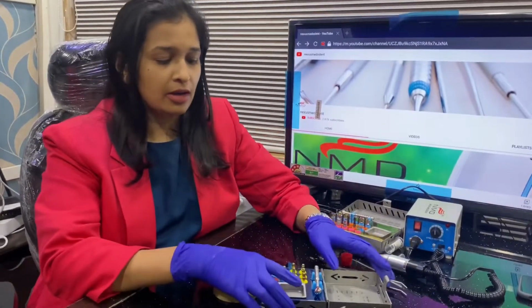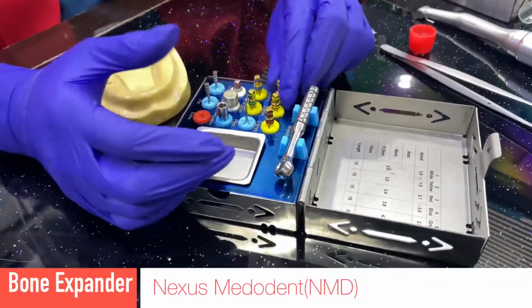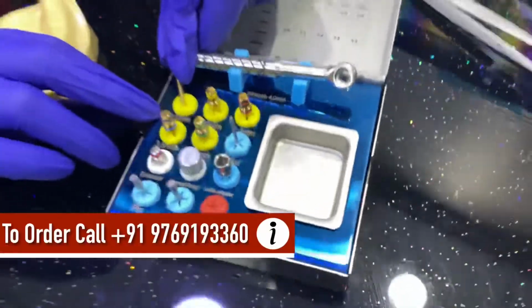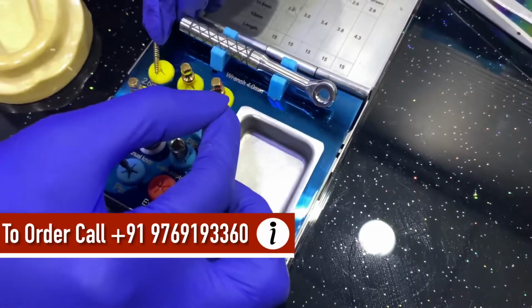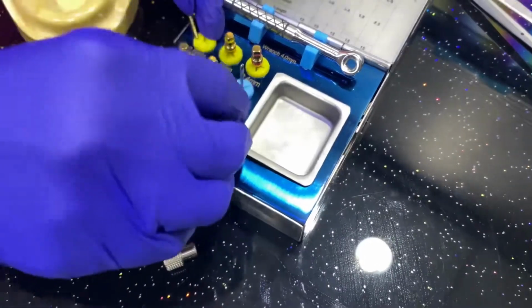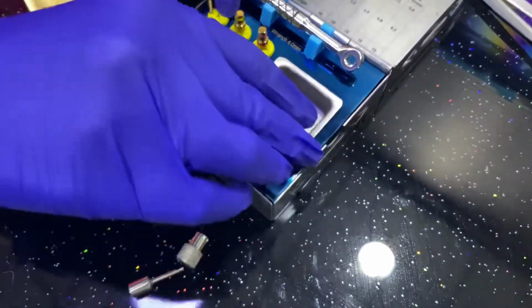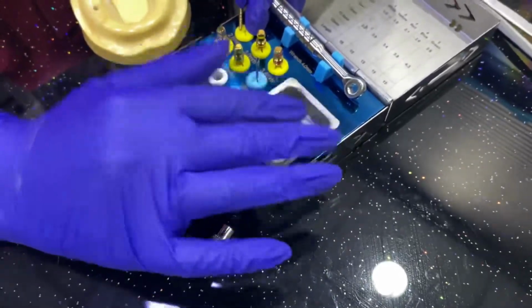So let me take you quickly through the parts which are there in the kit. This is called the bone expander kit from NMD, and these are the expanders which are there of different widths. If you can see, 2.6 mm, 3 mm, 3.4, 3.8, 4.3. This is the pilot drill, and this is the extender. This is the hand extender. This is the latch adapter, and these are the parallel pins. And here you can beautifully find a small tray where you can keep your bone graft or anything that you want to keep over here.